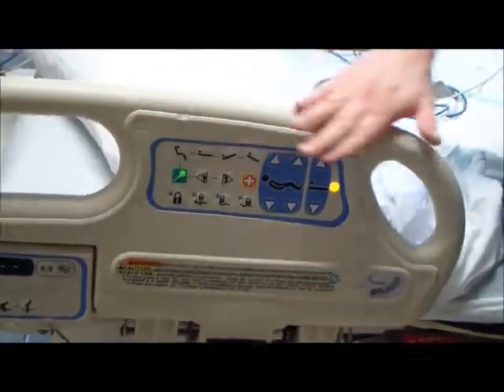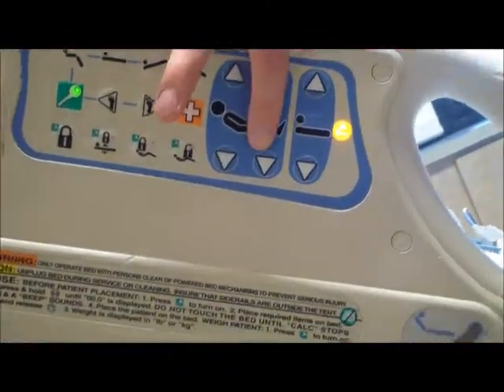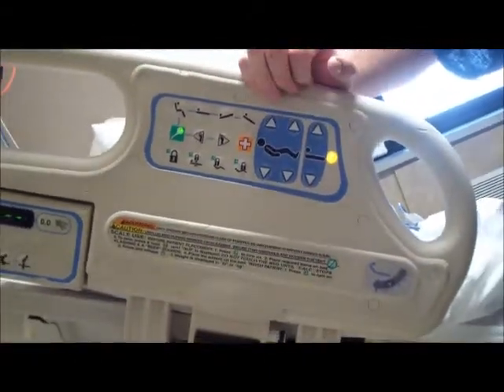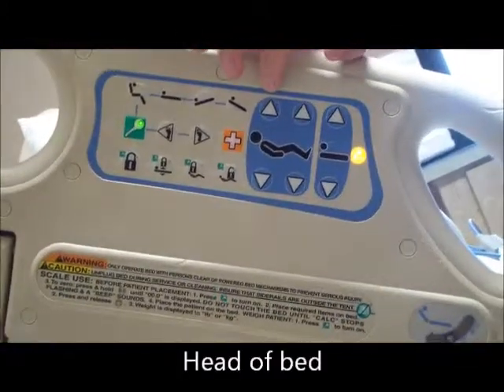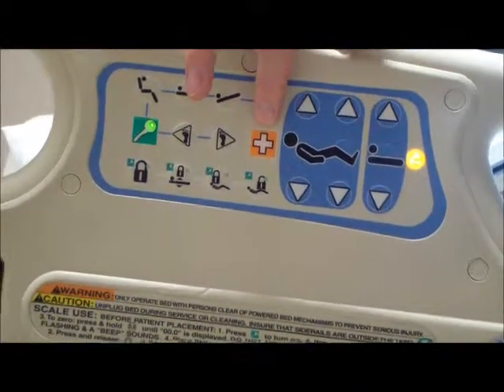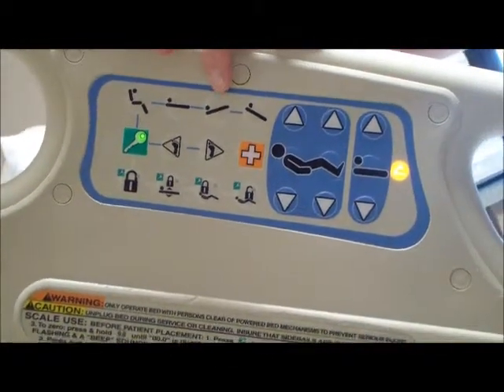Up here in our main panel, we have all sorts of different options. We have height of the bed, down and up. This part adjusts the knee area to bend it up or bring it straight, which can be locked with total knee replacement patients. This is the head up and down. This one's to contact the nurse. There's also different areas on the bed and also on the call light where you can call the nurse as well. This is a Trendelenburg position.